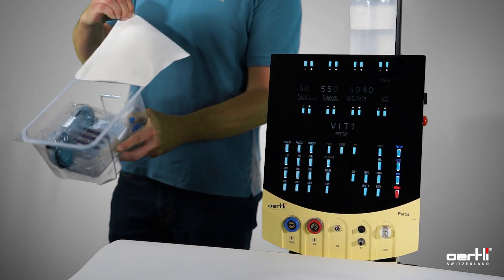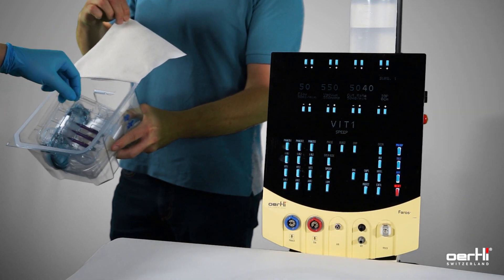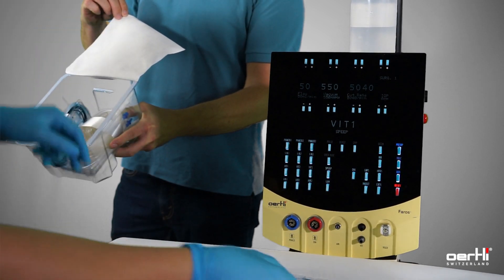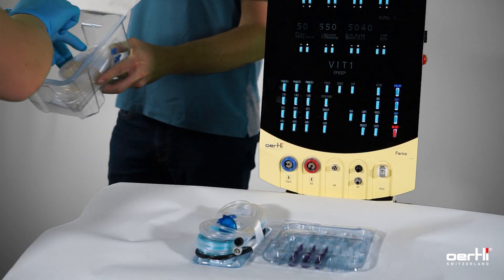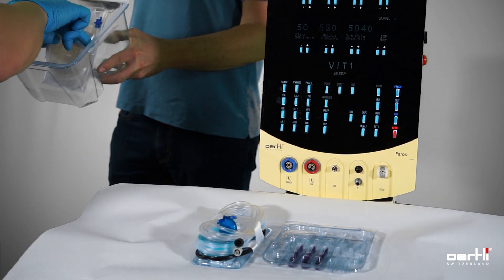Slightly tilt it. Grab the material, the bundle, and finally the cassette bundle.